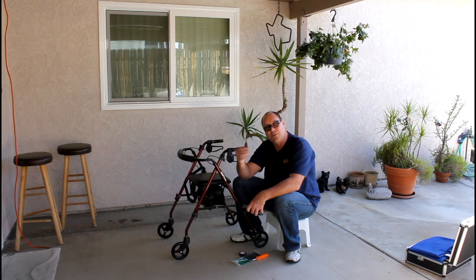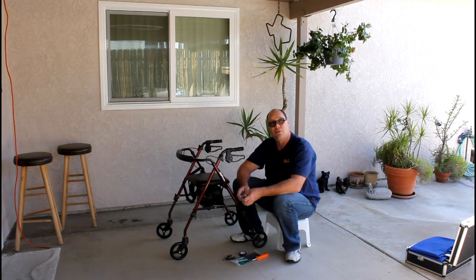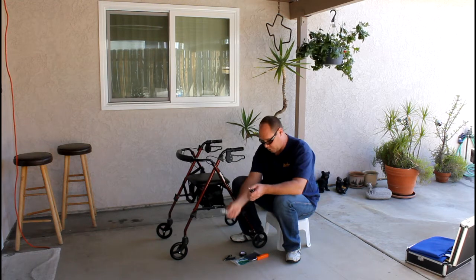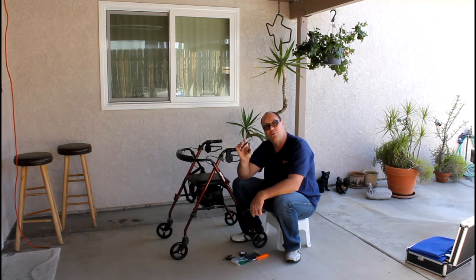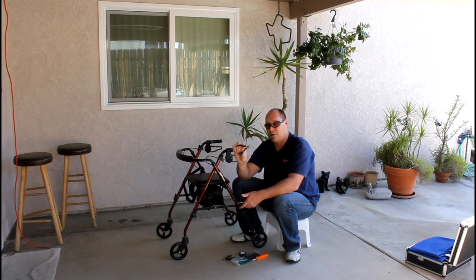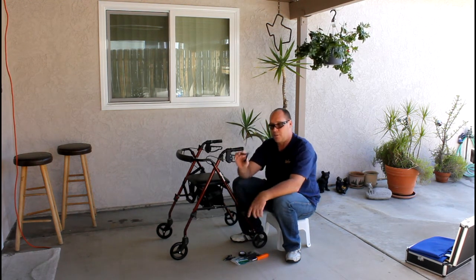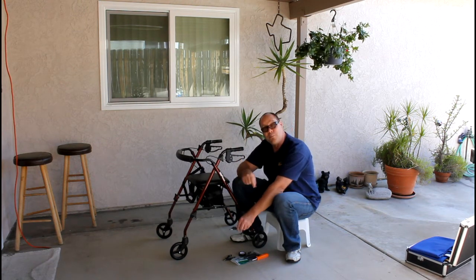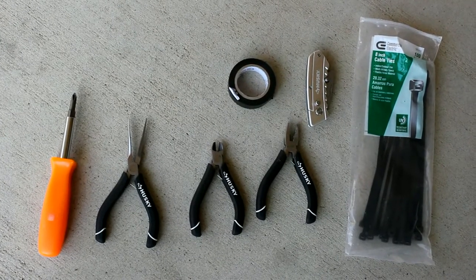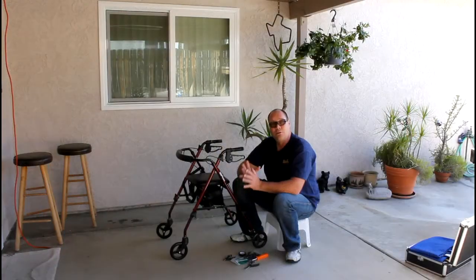I use a pair of wire snips — kind of little scissors. I bought small hand tools because we're working in small areas, which works really well for cutting zip ties or removing tape or yarn that seniors have used to tie up their equipment. A razor knife or scissors will also work. A small pair of pliers — channel lock, vice grips, anything that can let you torque a small nut — since everything is really just hand tight. Last is a pair of needle nose pliers. This little tool kit you can get at Home Depot; they sell a Husky brand three-pack, and you can assemble everything together for about $25 total — it's everything you need for walker maintenance.